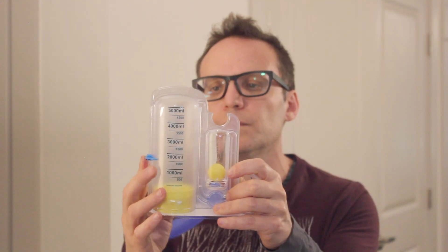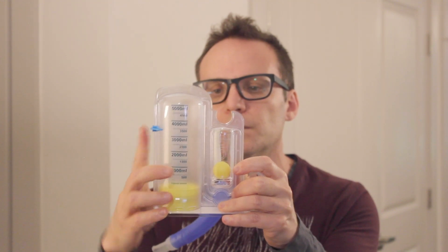When you've finished your exercise session, mark the highest point the piston reached by using the target indicator. This will be your goal next time.